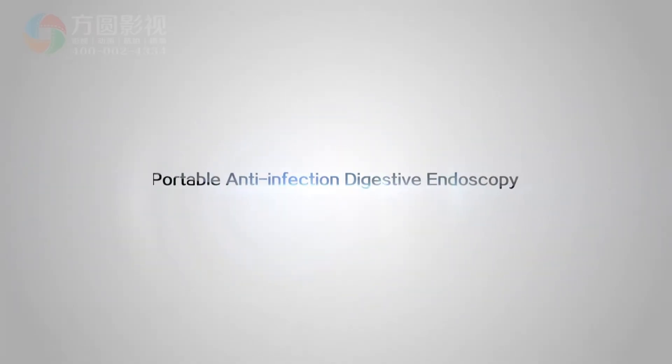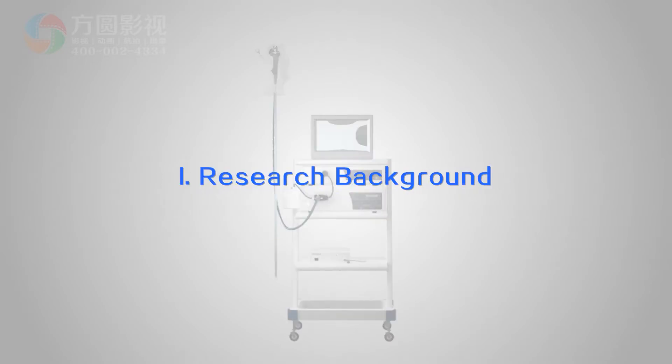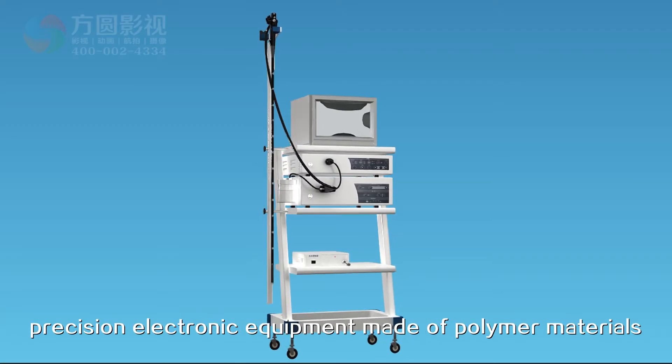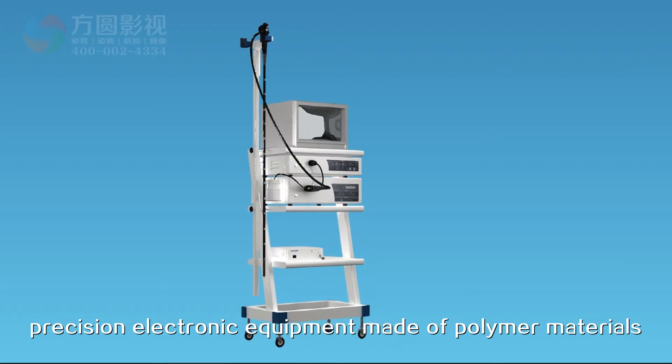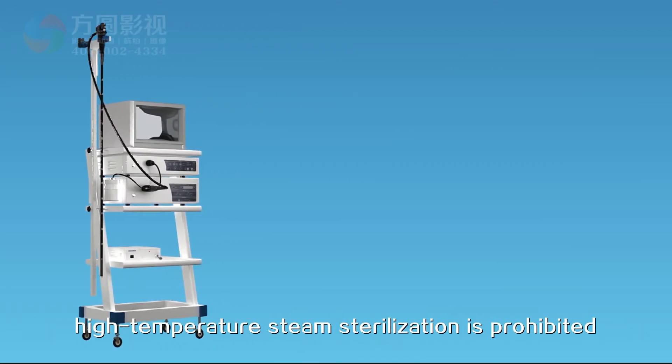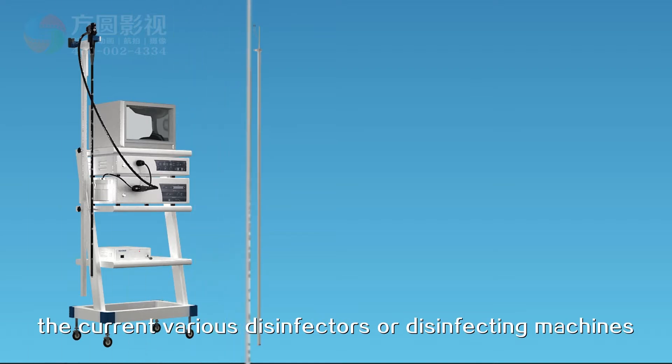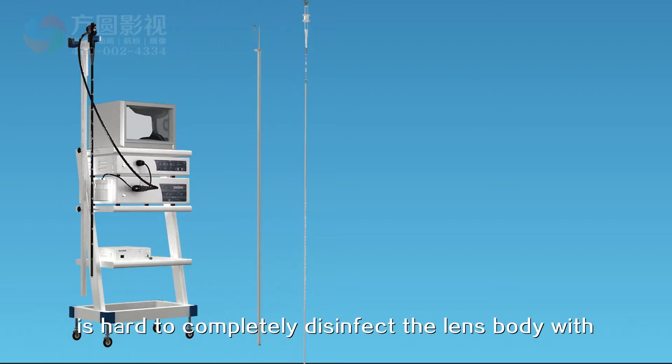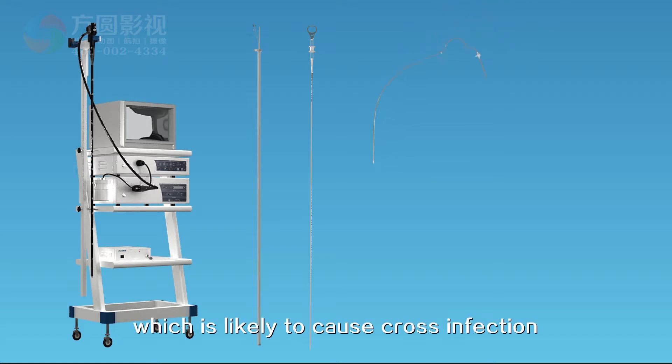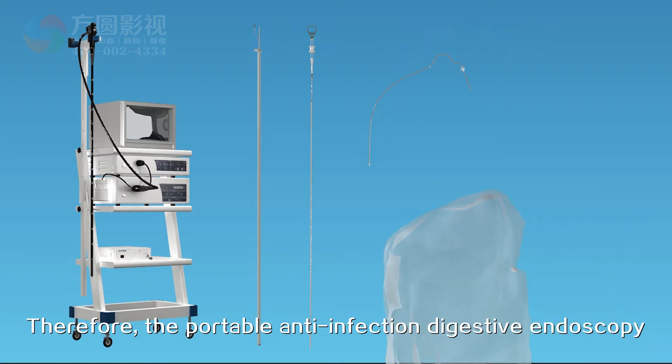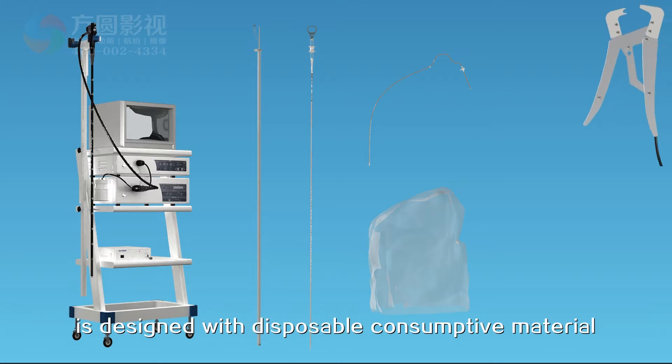Portable anti-infection digestive endoscopy addresses the challenge that endoscopy is precision electronic equipment made of polymer materials where high-temperature steam sterilization is prohibited. However, current disinfectors or disinfecting machines are hard to completely disinfect the lens body with its complex structure, which is likely to cause cross infection. Therefore, the portable anti-infection digestive endoscopy is designed with disposable consumptive material.